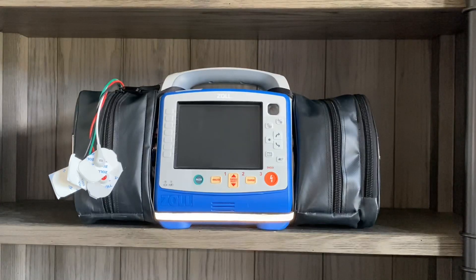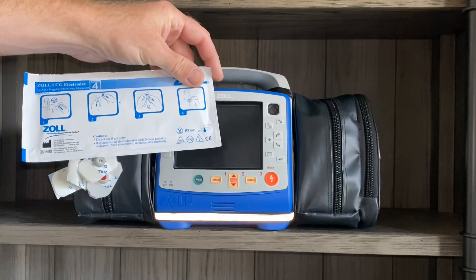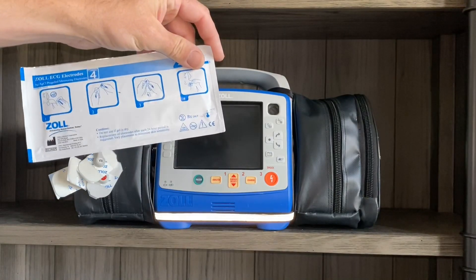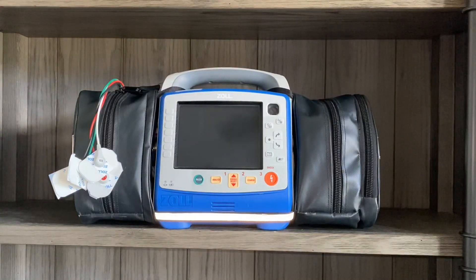So just to review: pre-connected electrodes — not a good choice. Electrodes that are in a sealed pouch, whether there are old wet gel electrodes or not — good. You want to err on the side of using these if possible. Make sure you're providing good skin prep before you put the electrode down, and that you don't have the electrode on any sort of hairy surface.